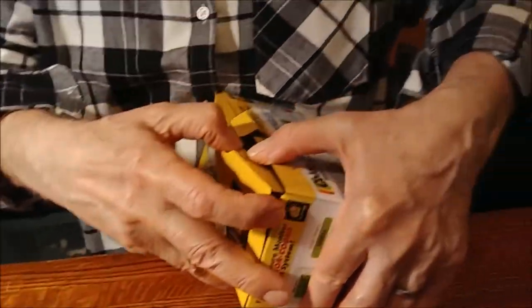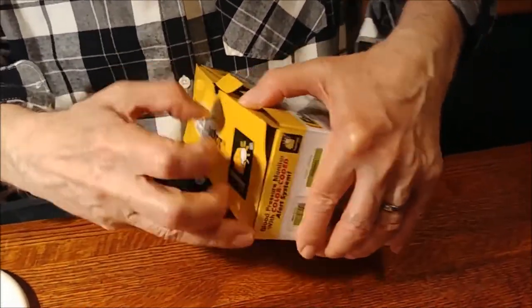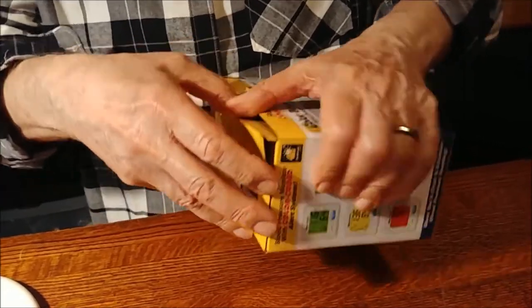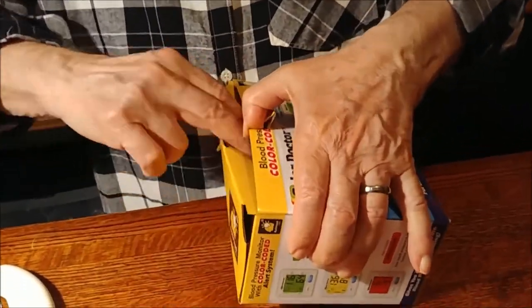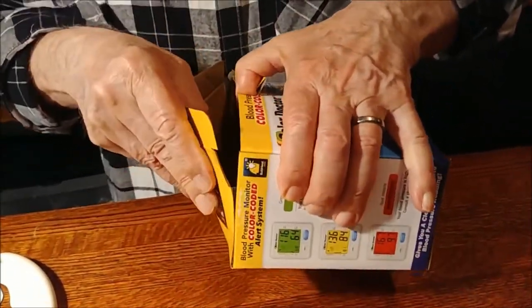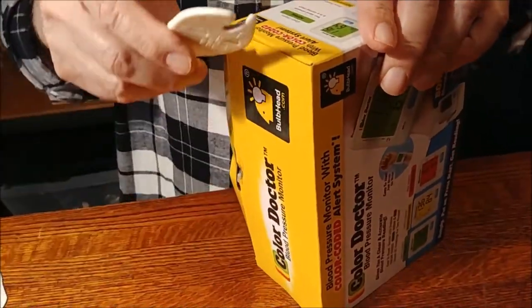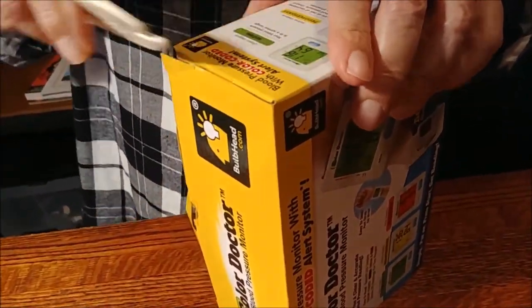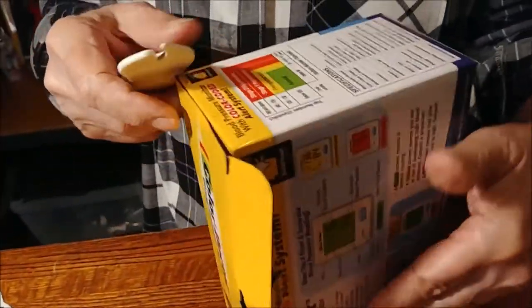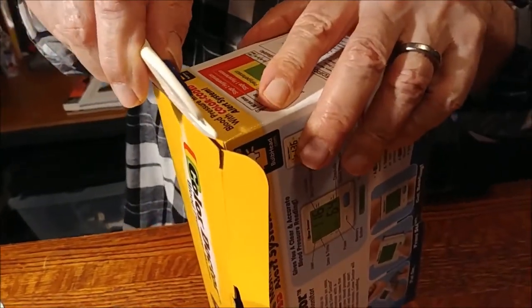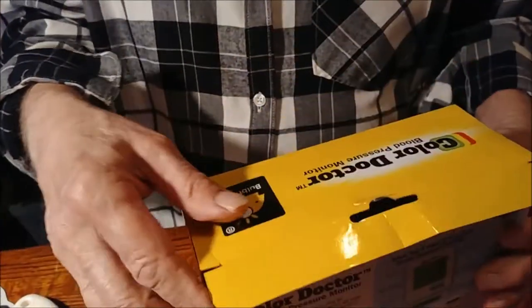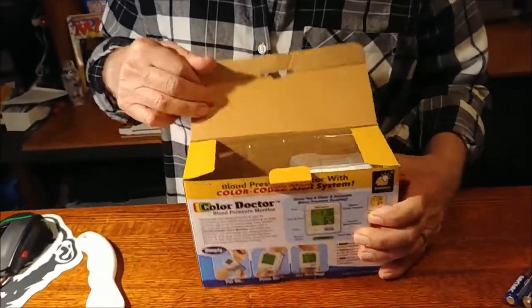My blood pressure is increasing just trying to get the freaking box open. Oh, my God. Oh, I see. This is a test. They seal the sides too. So if you buy this, don't let your blood pressure rise because it's a trick. Oh, my gosh. What are they kidding me?